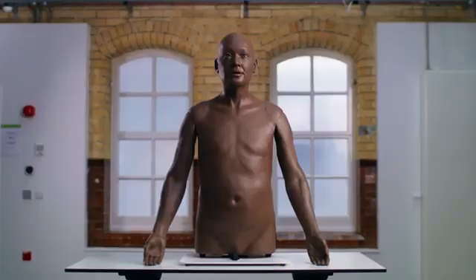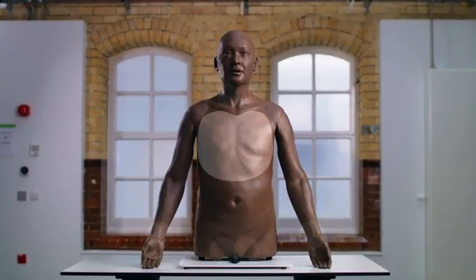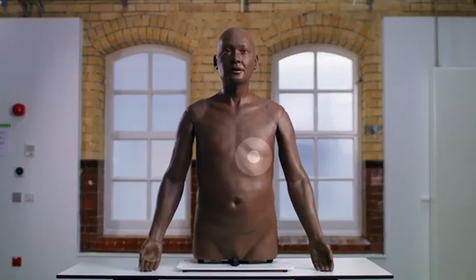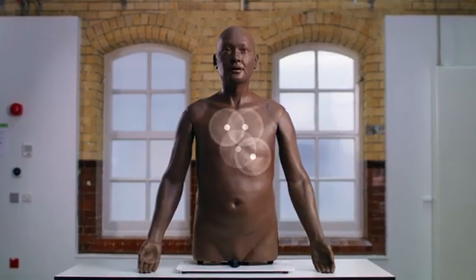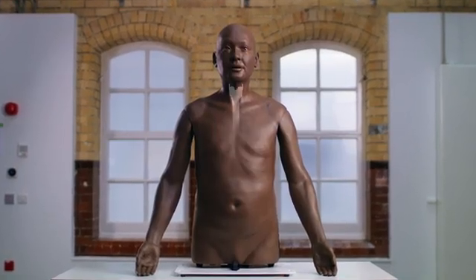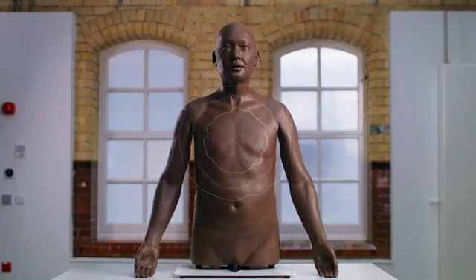It exhibits palpable pulses, lifelike breathing, apex beats, thrills, heaves and movable trachea alongside heart and lung sound profiles.